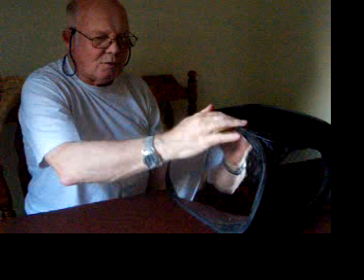Then I introduced the soft ball. At first I simply open and close my hand, grip it lightly, then open my hand and stretch my fingers — it's important to stretch your fingers. Then I grip the ball and squeeze it. I was amazed to get the impression, looking in the mirror, that my left hand was actually doing the same, as if I could feel my left hand squeezing the ball.